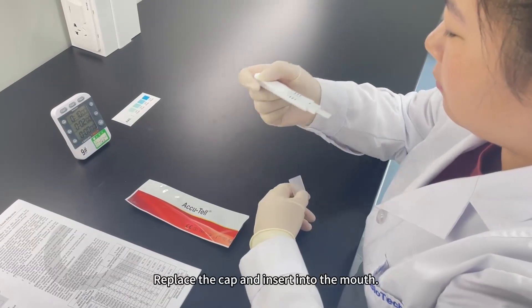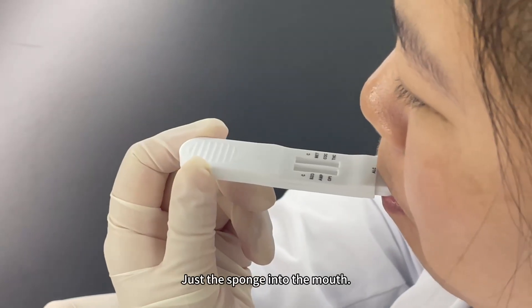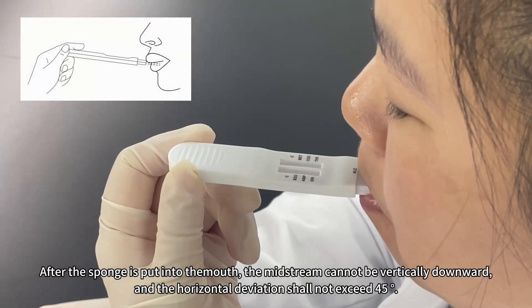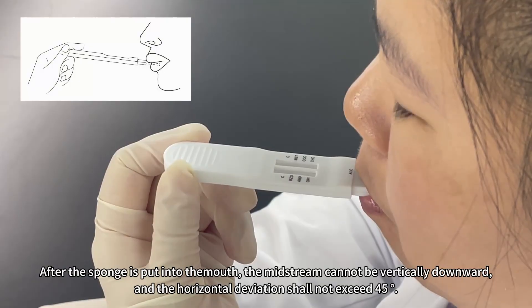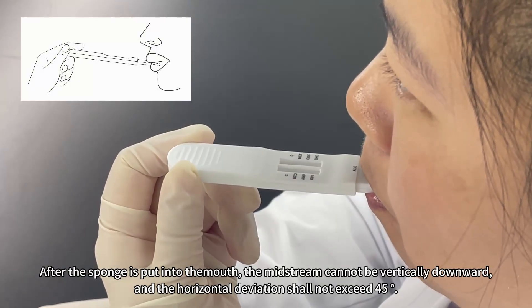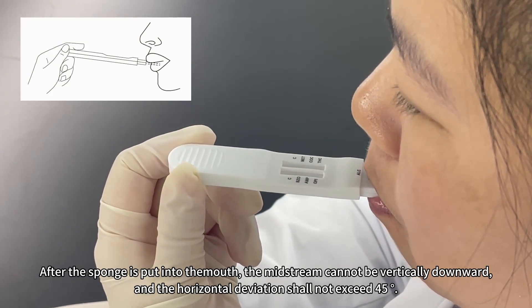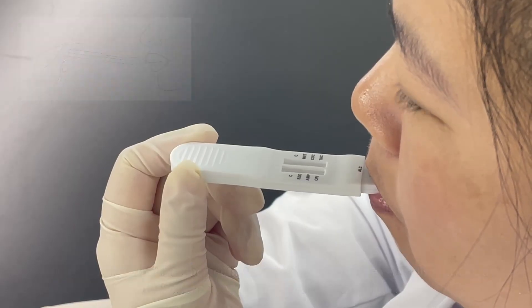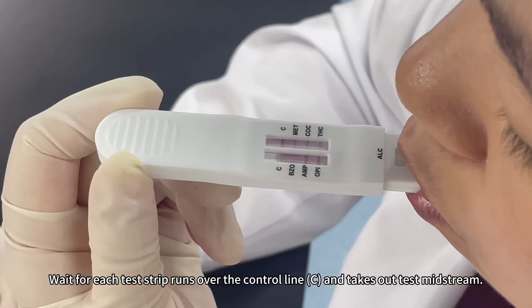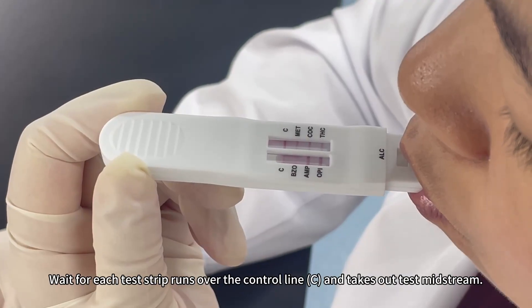Replace the cap and insert just the sponge into the mouth. After the sponge is put into the mouth, the midstream cannot be vertically downward. The horizontal deviation shall not exceed 45 degrees. Wait for each test strip to run over the control line C, then take out the test midstream.